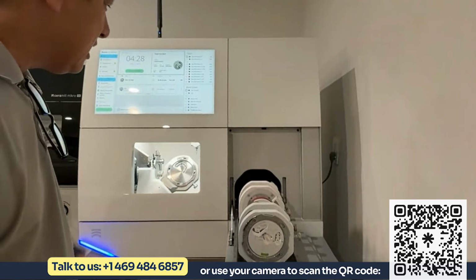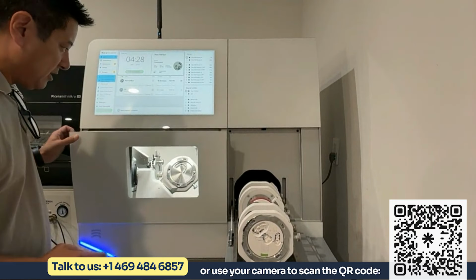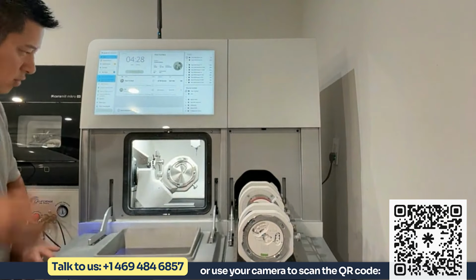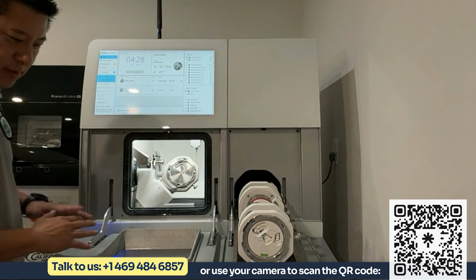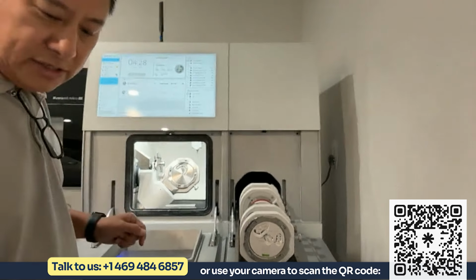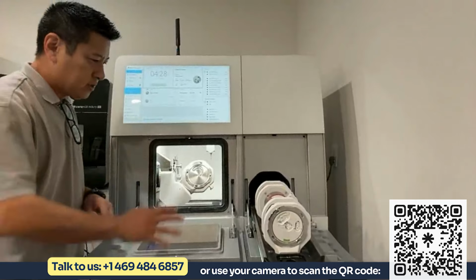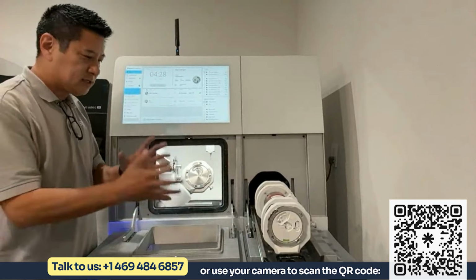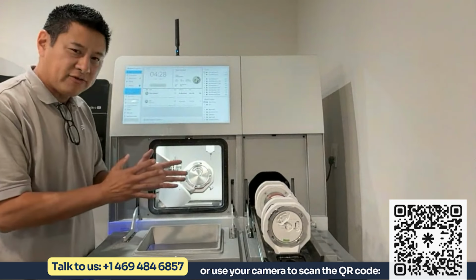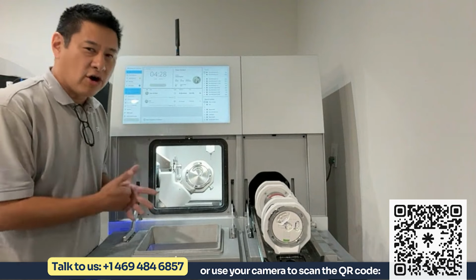one thing that I love talking about this mill that Enzo brought up before is the V-arm. And the one thing that separates this mill from any other mill on the market is this V-arm here. So I want you guys to think about this concept: when you're milling zirconia, glass ceramics, zirconia is pretty soft, Emax is harder, but metal is even harder.